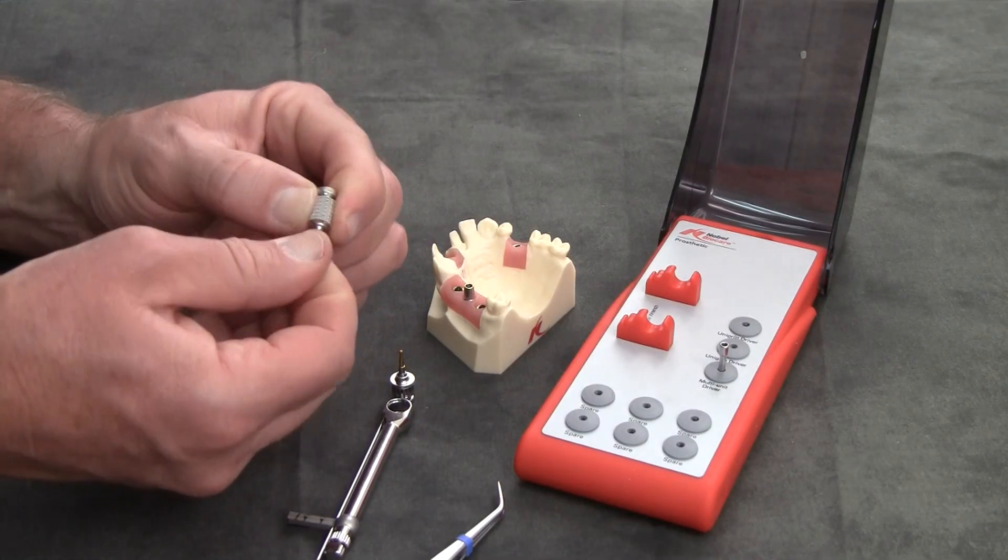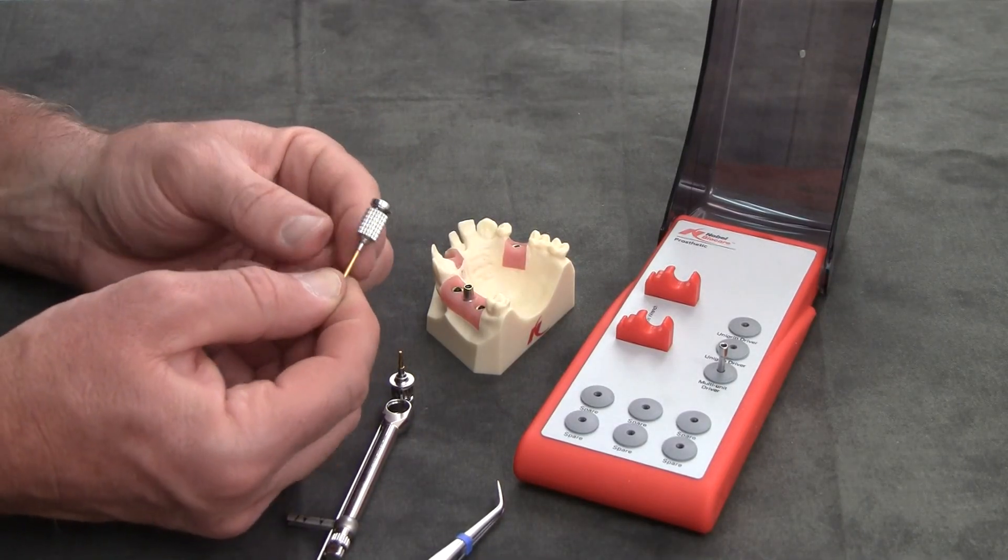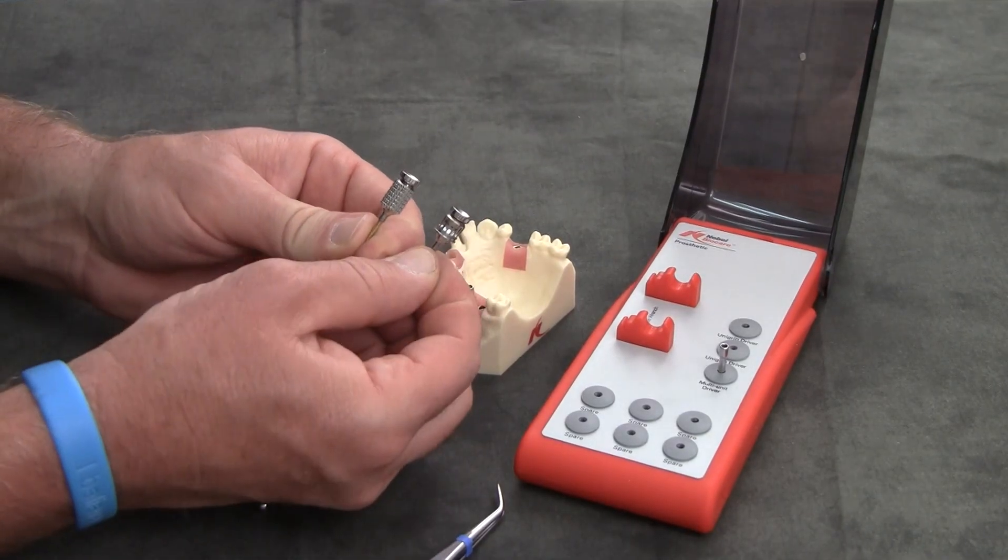It also accepts the latch head adapters. As you can see here, they do look similar.